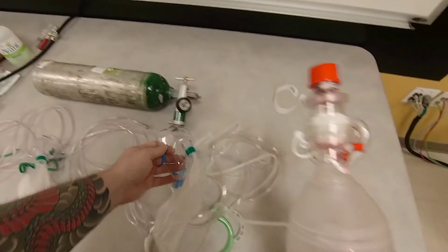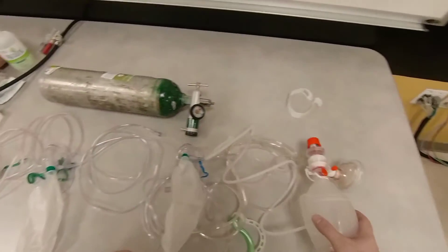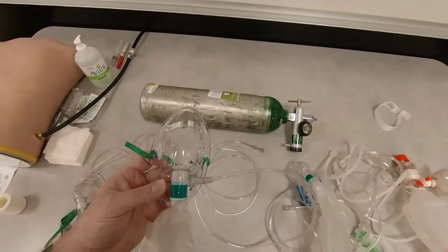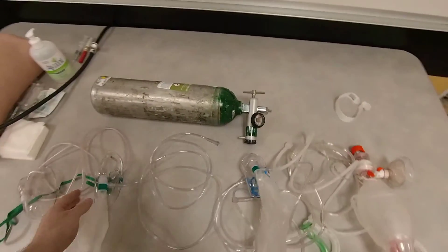So ideally, the best devices to employ to pre-oxygenate would be this device and this device. However, if you don't have this device and you don't have a PEEP valve, you can employ this device, run it at maximum flow rate to pre-oxygenate the patient.